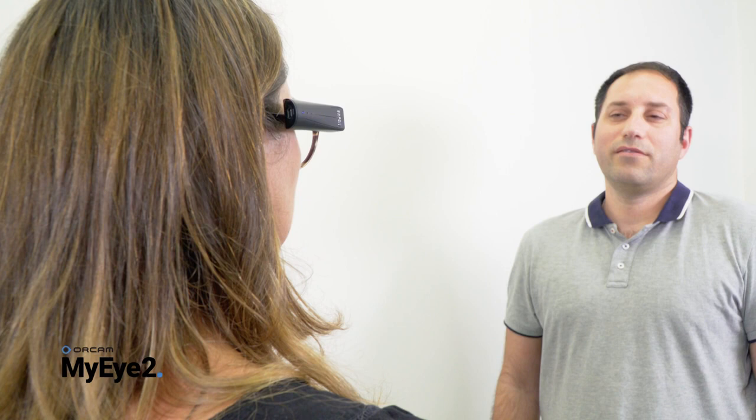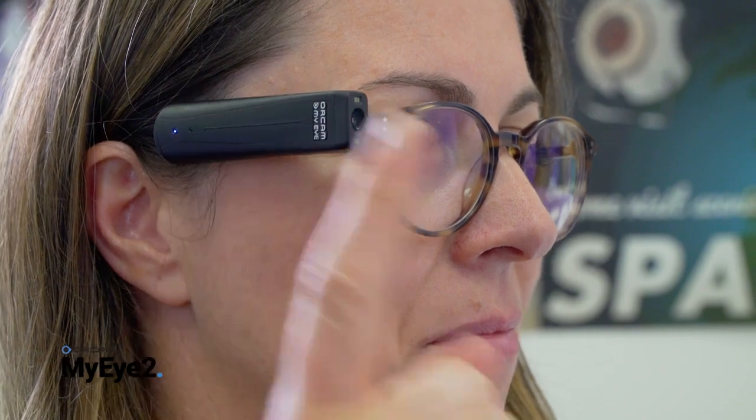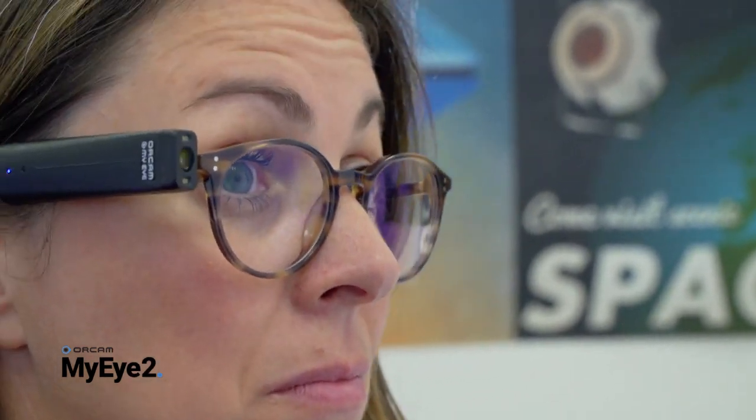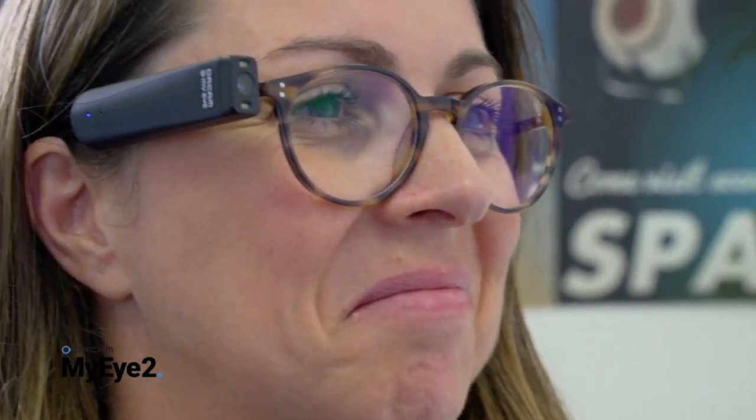If you need to again record the person's name, swipe the touch bar. To confirm adding the new face, press the touch bar. David. After you confirm adding a person, you will hear, "Person added." Note, learn one face at a time in an area with good lighting and a neutral background.